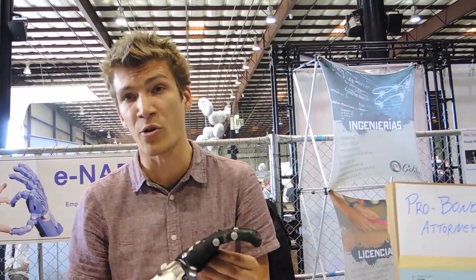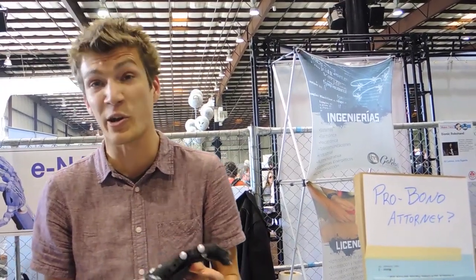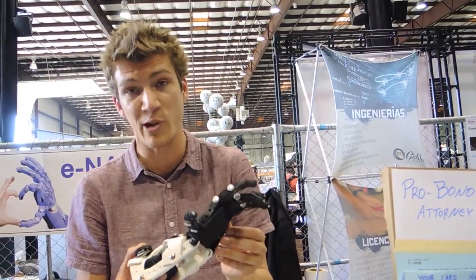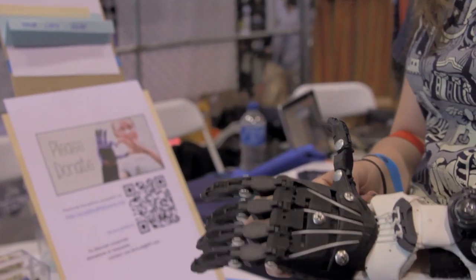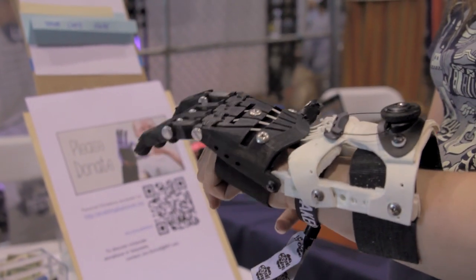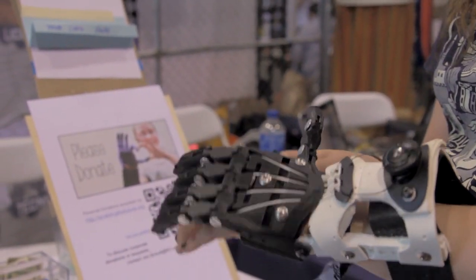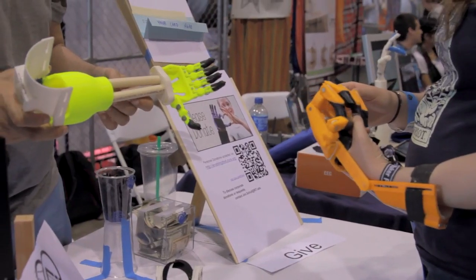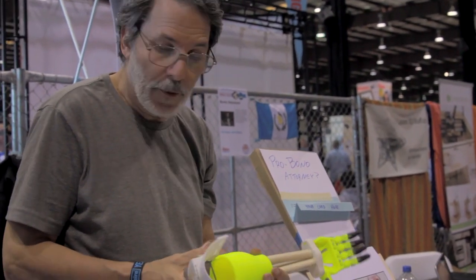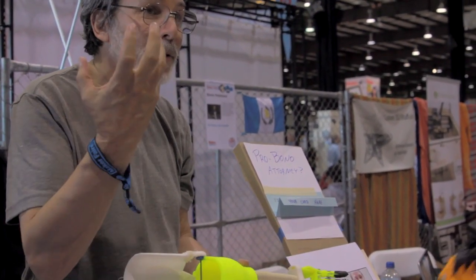This is actually a really old design that originated in Australia — there's a really old patent from the late 1800s that describes this body-powered prosthetic. It's a community that's really not been served by commercial solutions, because children outgrow prosthetics at such a rate — just like outgrowing shoes, every six to eight months. It really doesn't make sense to have shoes that are $40,000 a pop.